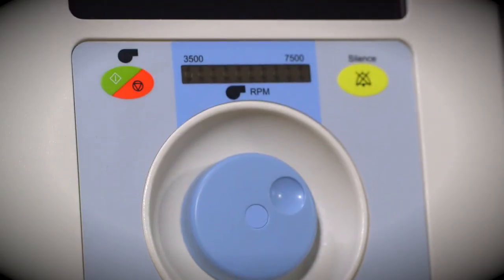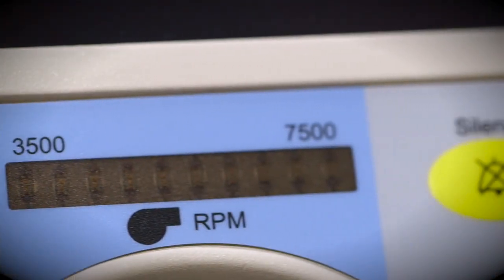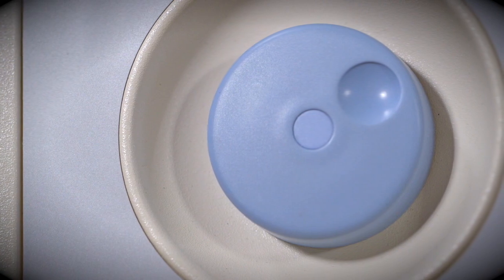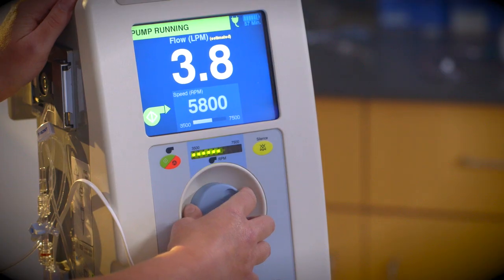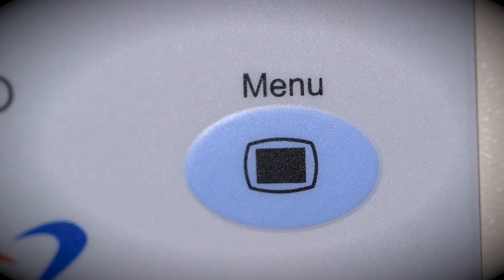The control panel has four major components. The Start-Stop button activates and stops pump operation. The alarm mute button temporarily silences the audible portion of an alarm. The speed control knob adjusts pump speed in revolutions per minute to increase or decrease flow in liters per minute. You can make selections on the menu screen with the control knob or with the menu button located below the screen.